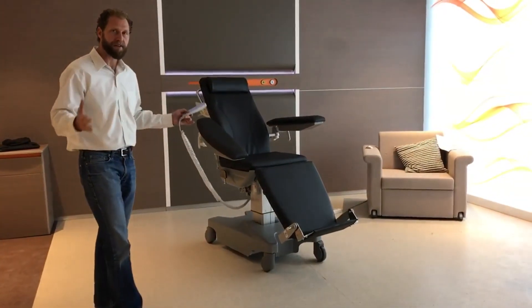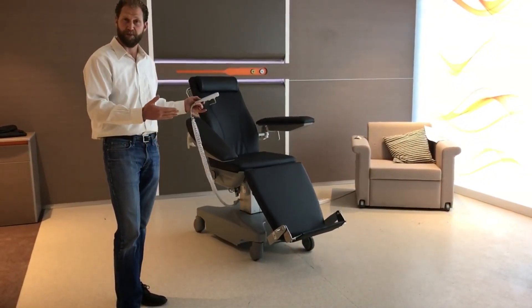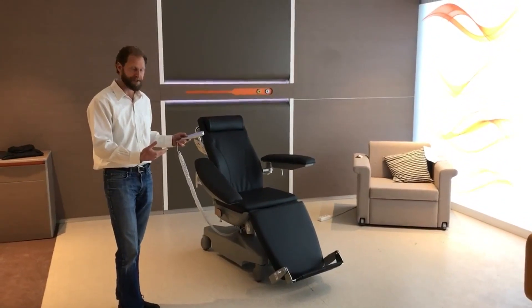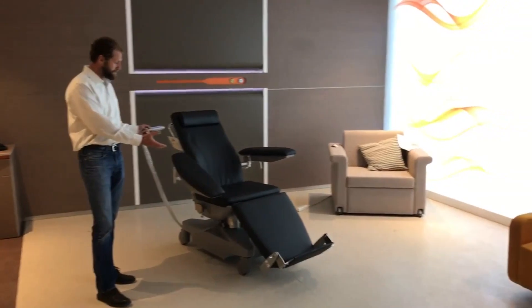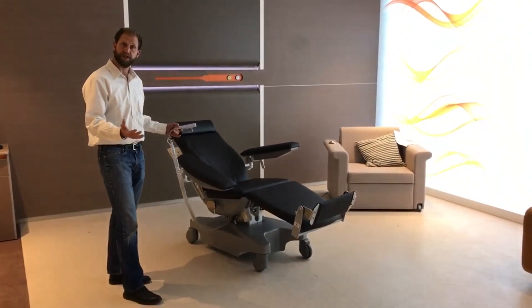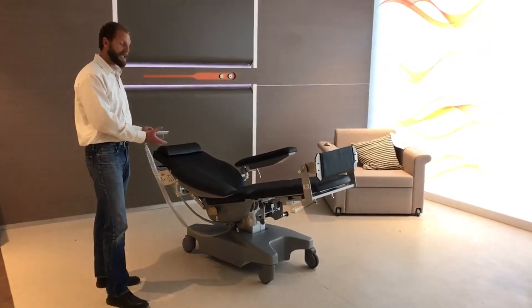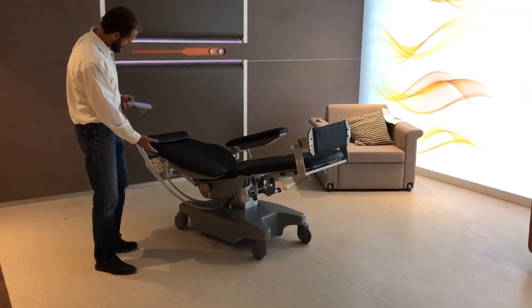It also has a lot of options. Five motor, of course it comes standard with electrically adjustable calf support, and removable if you want to place in some sort of exercise equipment or some of our other options. Of course it comes with three dimensional and rotating side arms for your armrests. For dialysis procedures it's important to put the arm where the caregiver desires so it's very comfortable. It can be removed and we can place in a side rail if preferred.